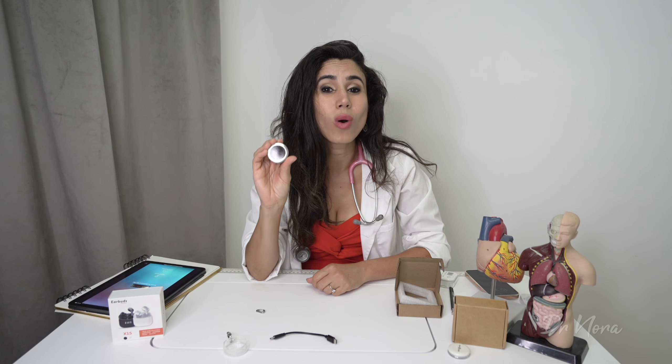You'll be surprised to hear that this Stemoscope actually allows you to amplify sounds up to 100 times. My Bluetooth Littmann stethoscope amplifies 24 times, and my Littmann Digital Core amplifies up to 40 times — so this is almost over double the Digital Core. But how does that compare in the real world when you're on the wards?